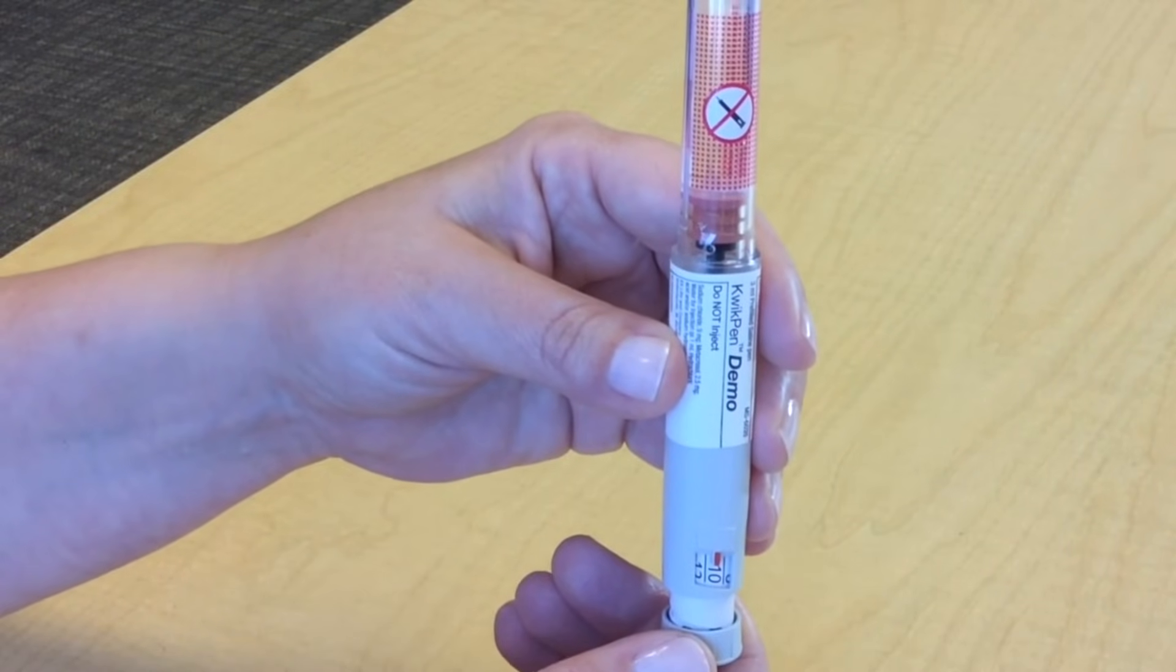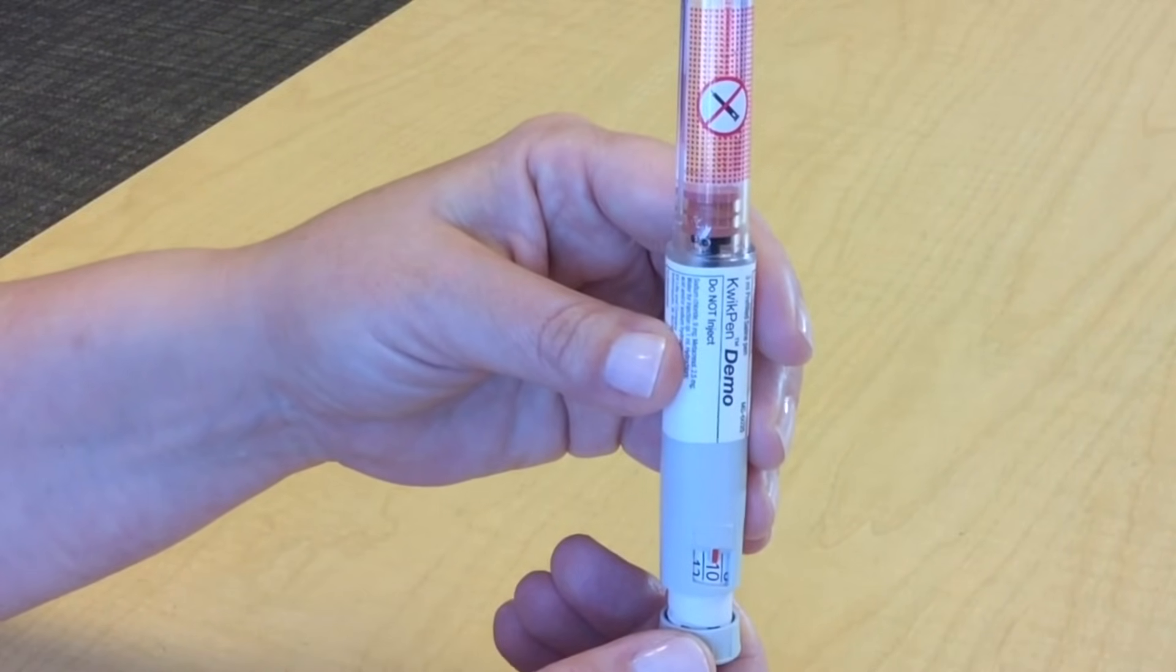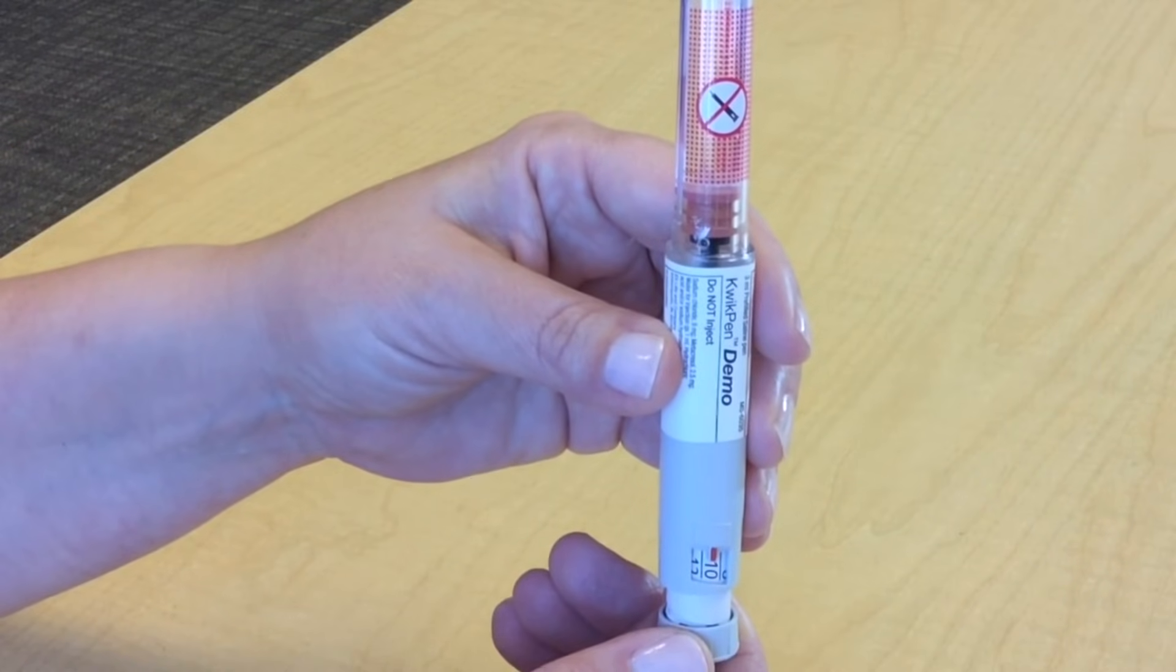You may see a small amount of insulin left in the pen that you won't be able to inject, and this is normal.